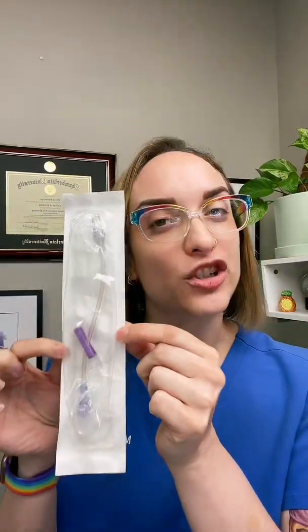You will need what we typically call a J-loop, which is the part that actually attaches to the IV catheter hub, and this is what we saline lock. You'll need some type of securement device as well. Again, this depends on your facility, but most places use some type of an occlusive dressing so that you can still see the site and assess it for changes.